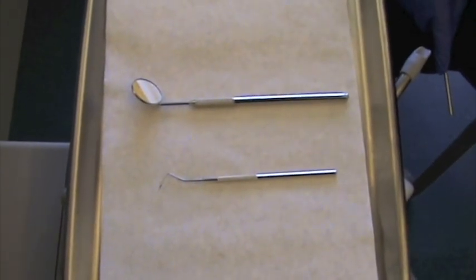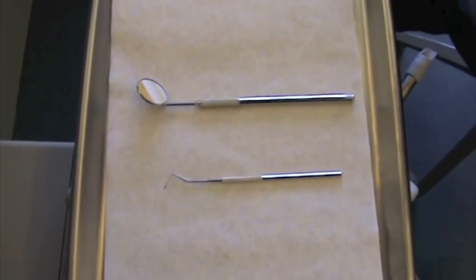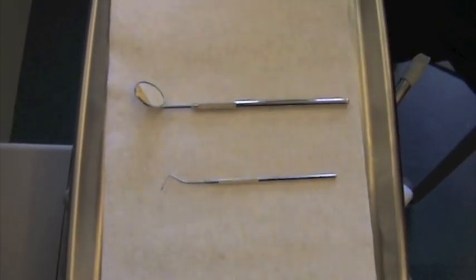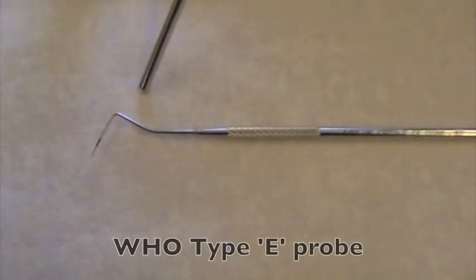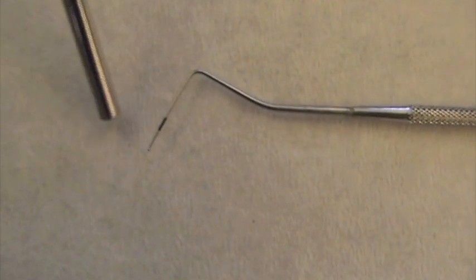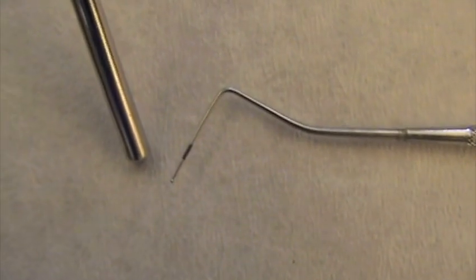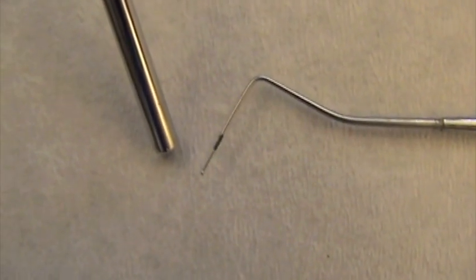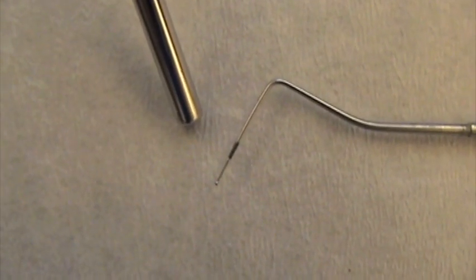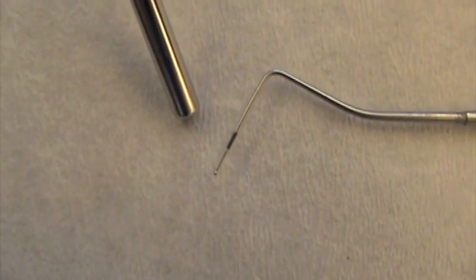The following is an explanation about the basic periodontal examination, or BPE for short. To do a BPE, we use a WHO probe. This probe that you can see in front of you is the type E probe. Notice the features: a 0.5mm ball at the end of the probe, specifically so that you can detect subgingival calculus. Notice the black band, which is from 3.5mm to 5.5mm. This will be explained as we go through how to perform a BPE.